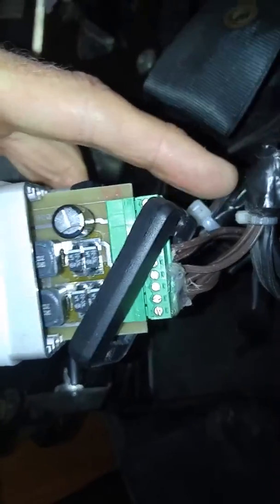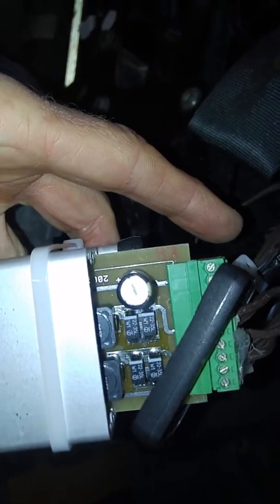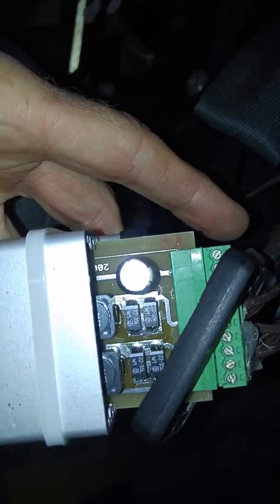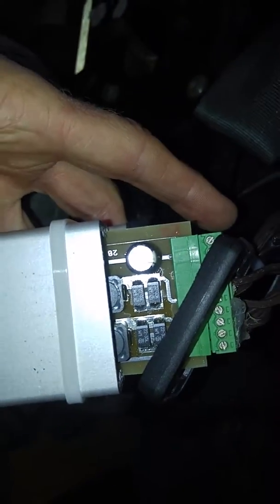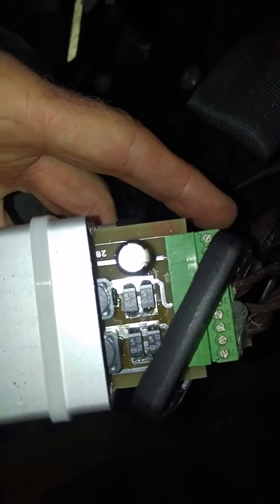You've got to make sure that those connector screws are good and tight on the wire. I suspect that the old supply could have been a bit fatigued due to long use and perhaps some problems with the capacitors. This whole unit just gets mounted up in the back of the chair.